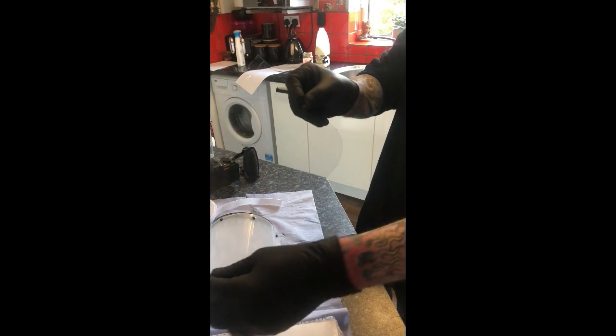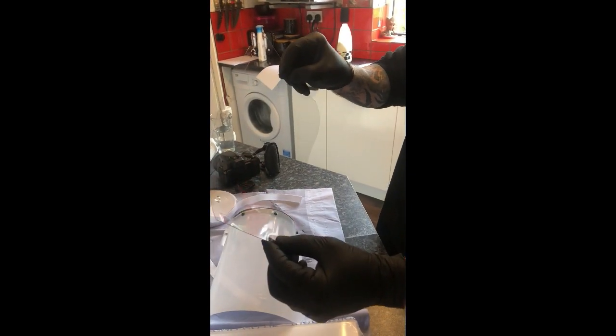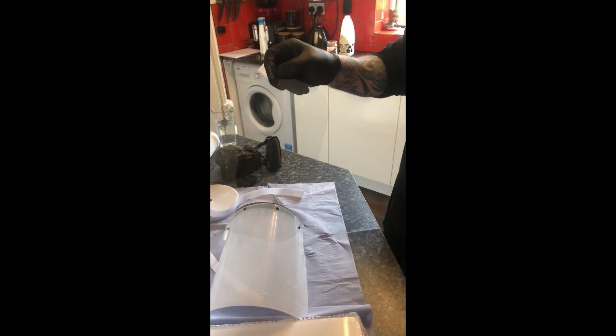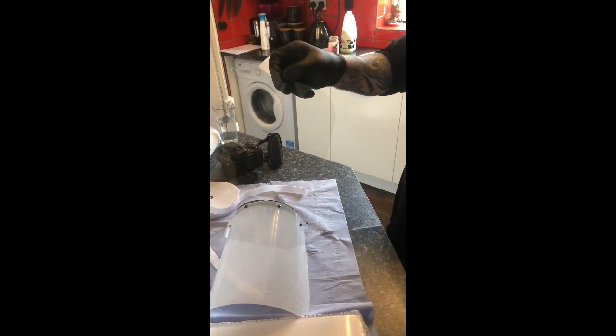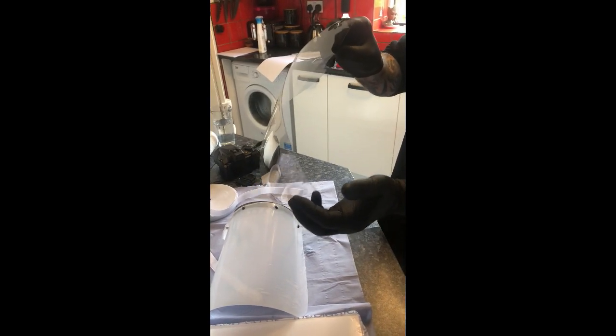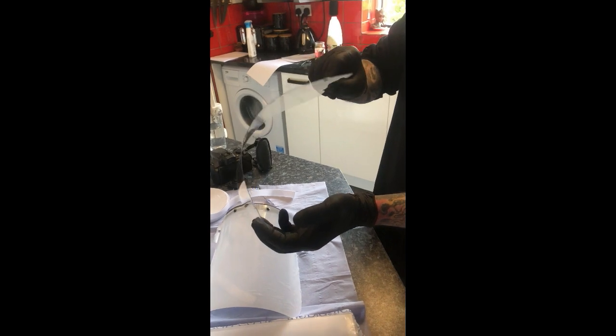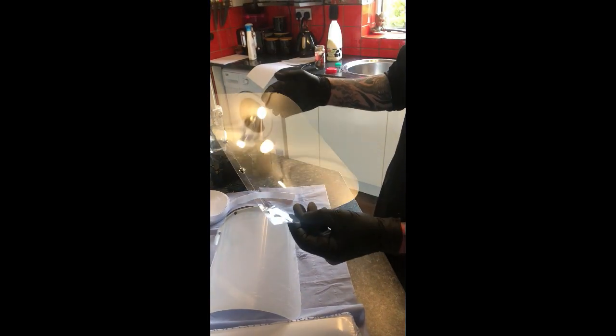You'll be left with an extremely transparent sheet. You could possibly wipe these sheets with isopropyl alcohol or bleach, but with it being poly, it will scratch. So if people have got rings on, et cetera, it will scratch.